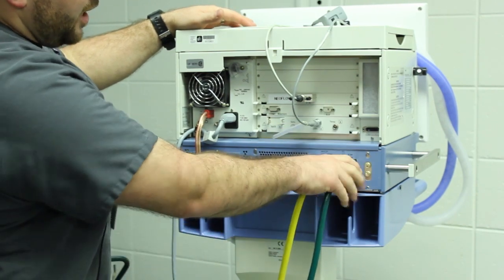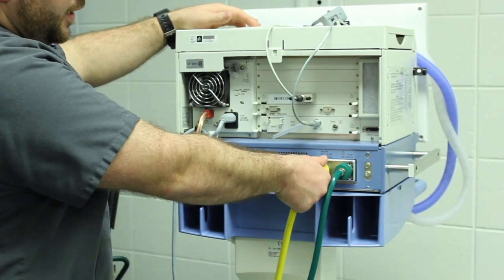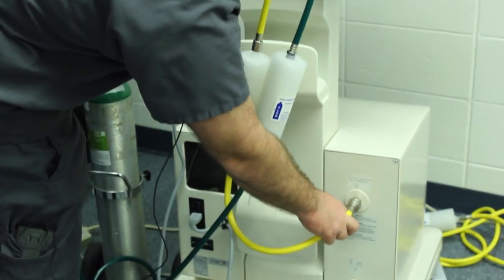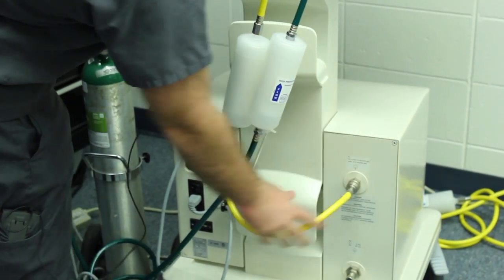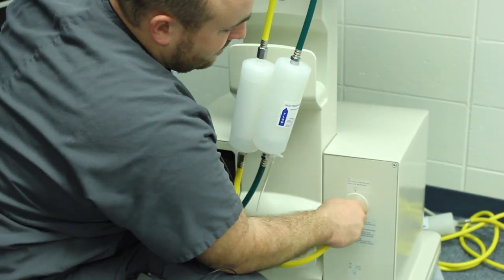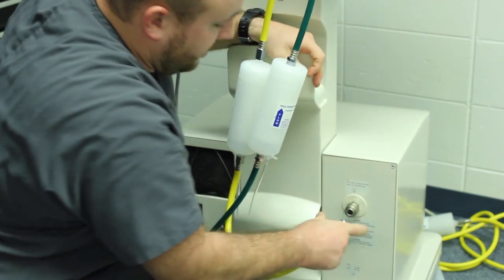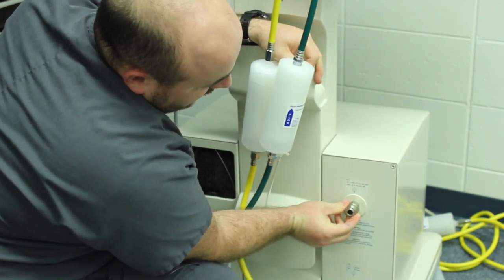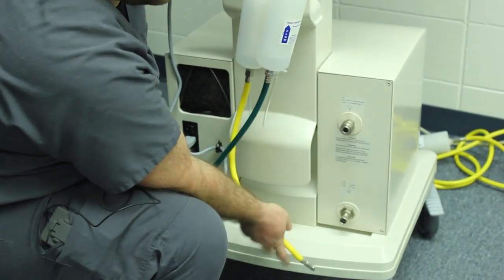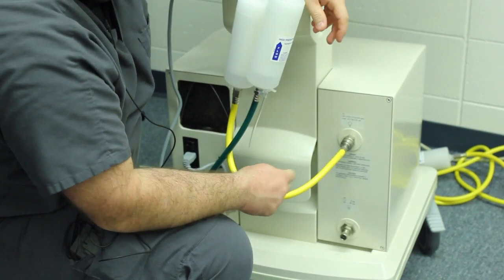Air is essentially what we're running the machine off of, because we're running off the large compressor on the bottom. The air hose unscrews from right here and goes down into here — your compressor will output 50 PSI up into the vent. If this line ever comes undone, it is pressurized. To remove it you push the top part out and it pops — kind of loud. This one at the bottom is for hooking up another air source, which you won't be doing, so put this back in — it clicks and holds.